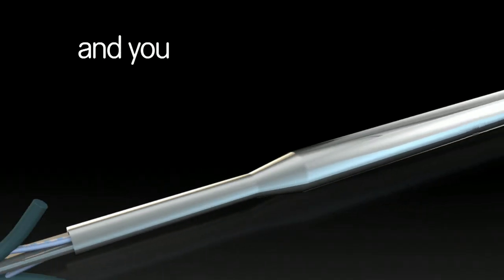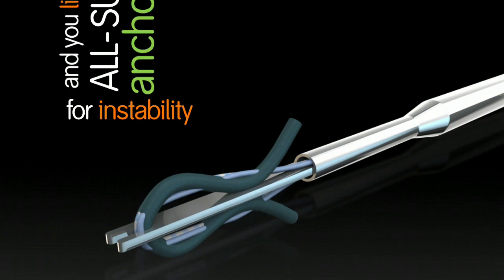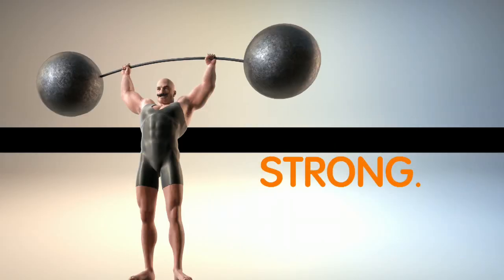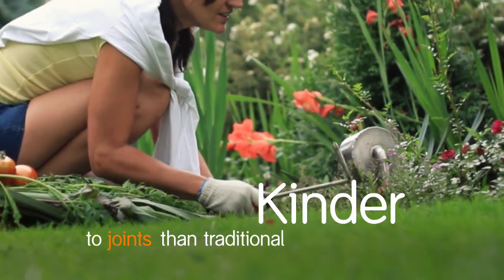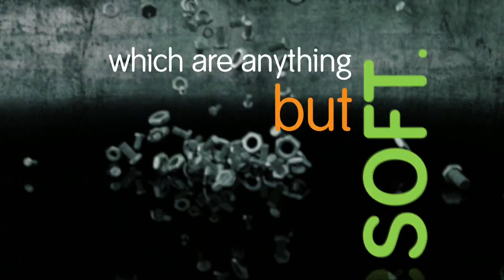Okay, so you're a sports med surgeon and you like using all suture anchors for instability repairs because they're small, strong, soft, kinder to joints than traditional hard anchors, which are anything but soft.